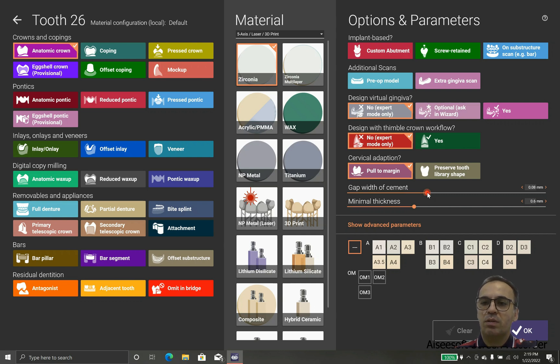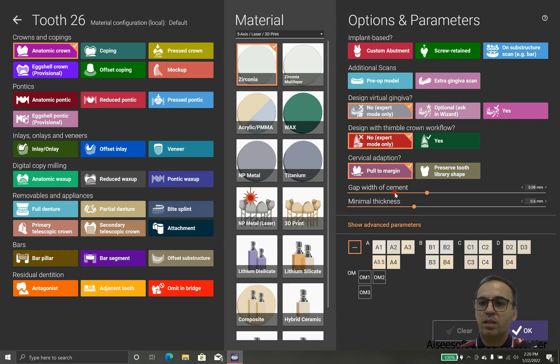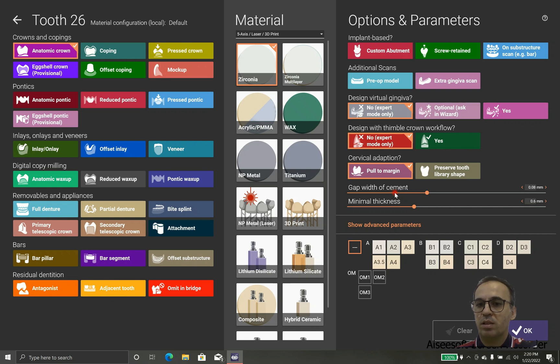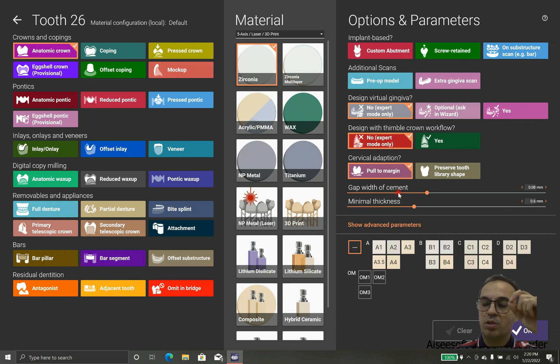In case that you use it too much, you have a problem with a crown that is too loose. And in case that you use it less than enough, we have a problem with the crown that is not going to sit. So we should use that number wisely, and in case that you use this number as it should be, your crown will fit snugly.